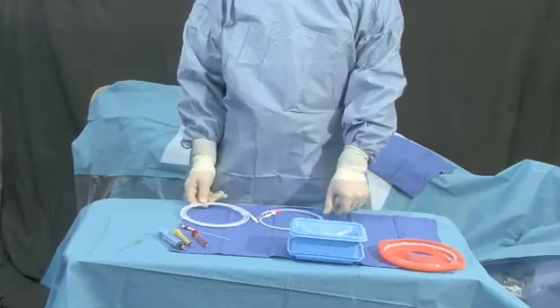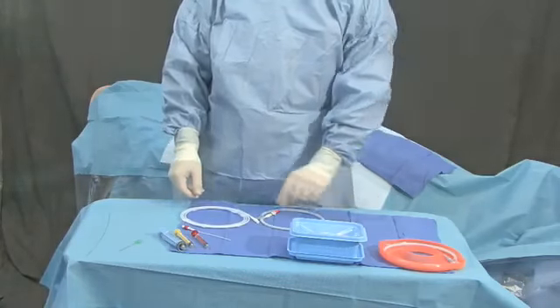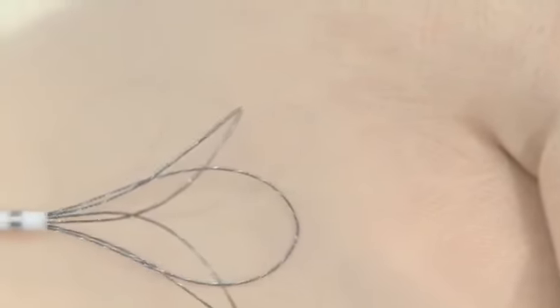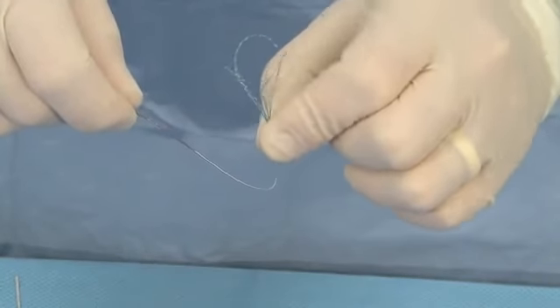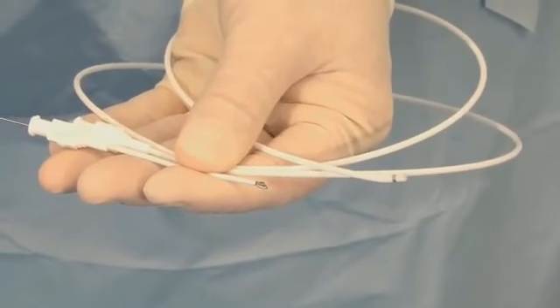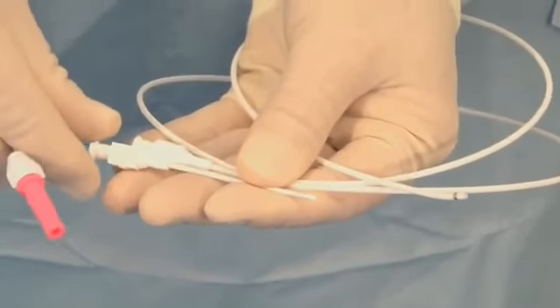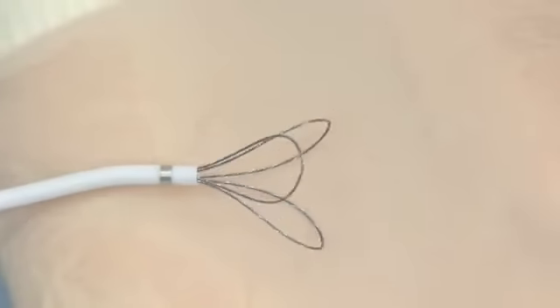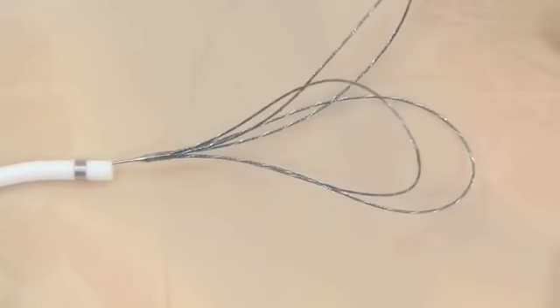The Snare is uniquely designed with 3 loops to increase the probability of foreign body capture over single loop designs. These loops are interlaced for structural integrity. The Snare is constructed of flexible, kink-resistant, super-elastic nitinol wire, enabling it to be introduced through catheters without the risk of device deformation. Platinum strands are incorporated in the Snare loops for excellent fluoroscopic visualization.